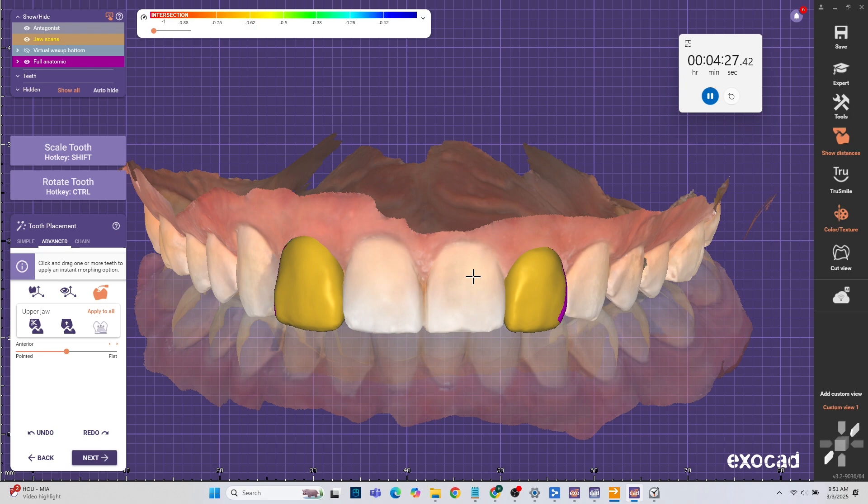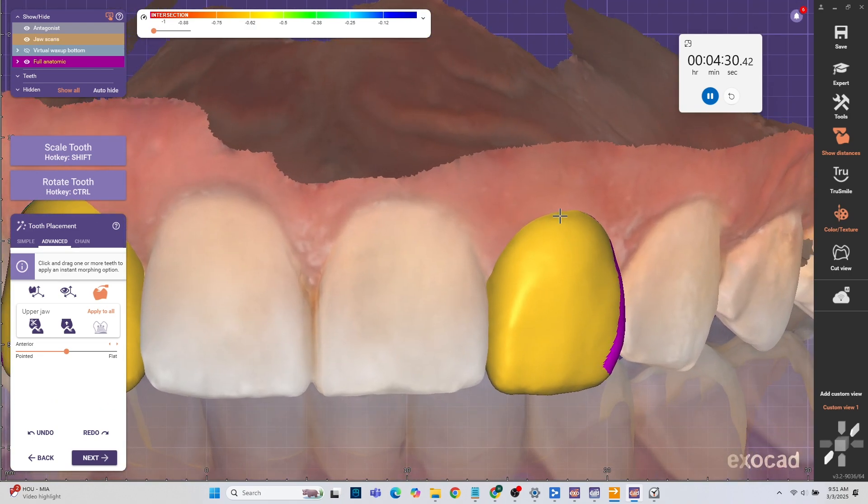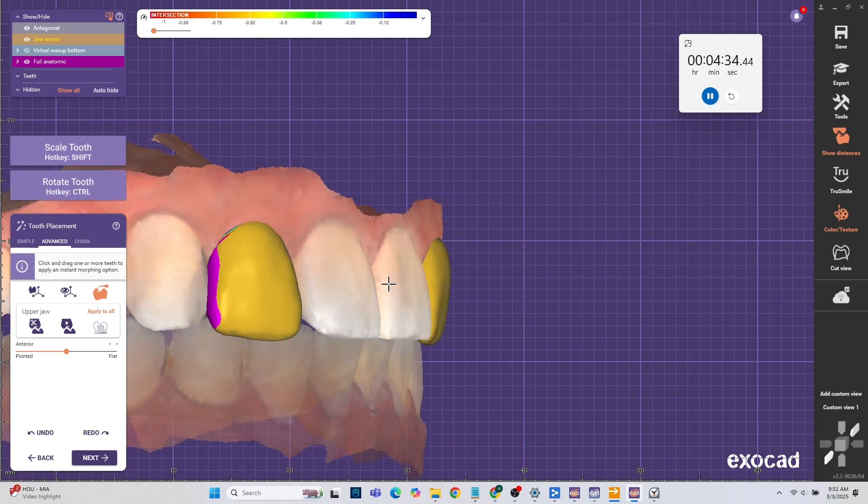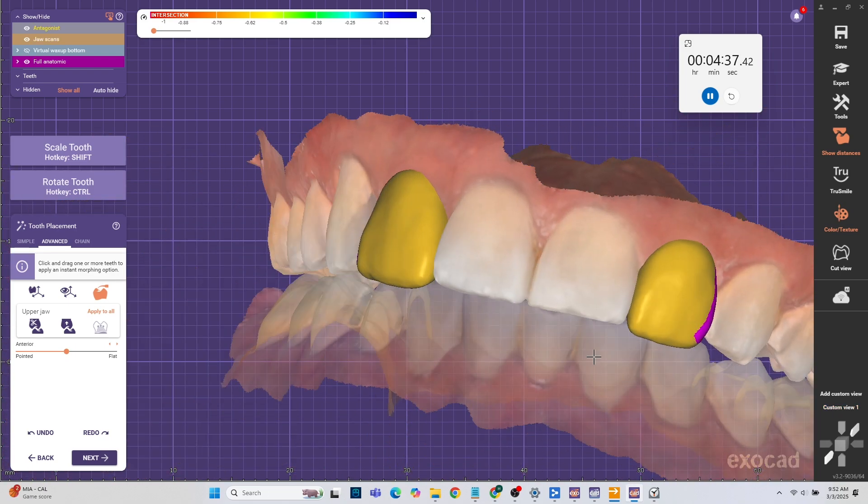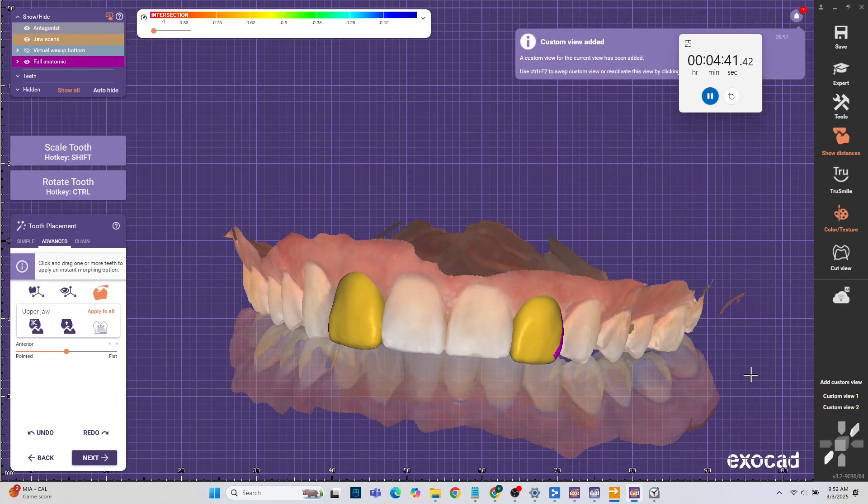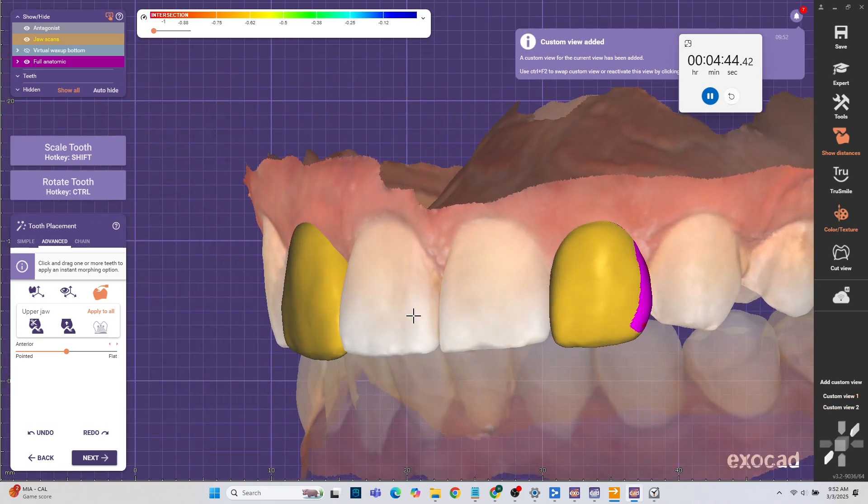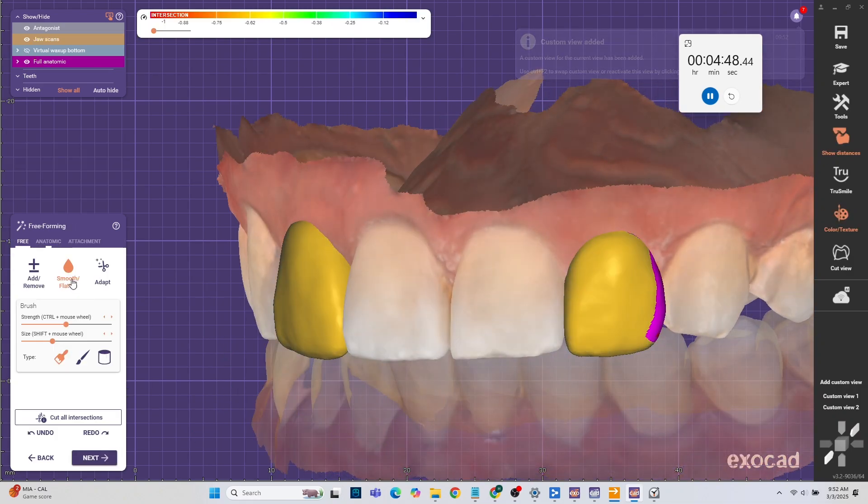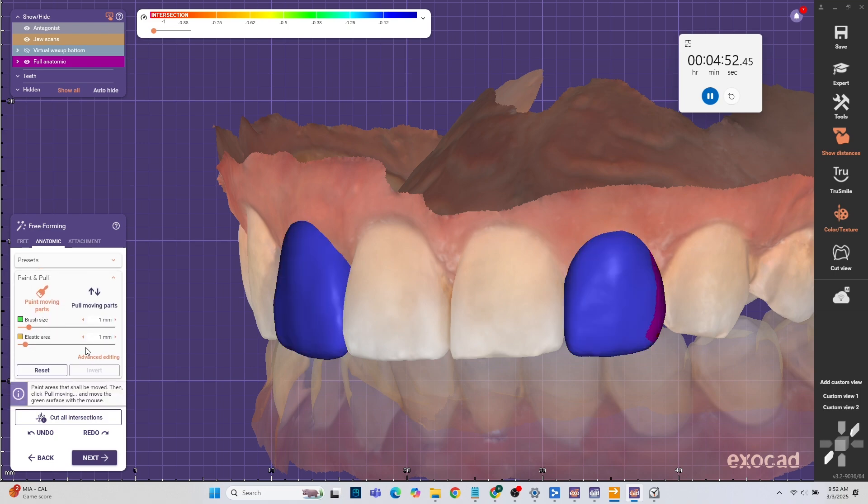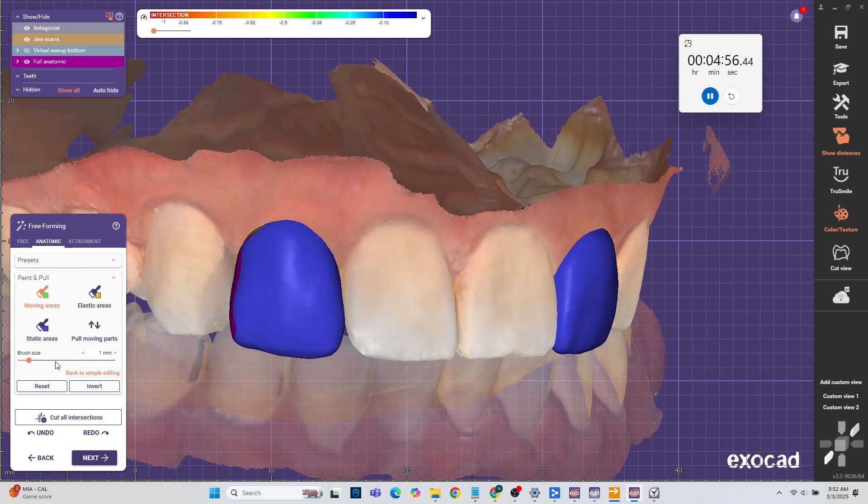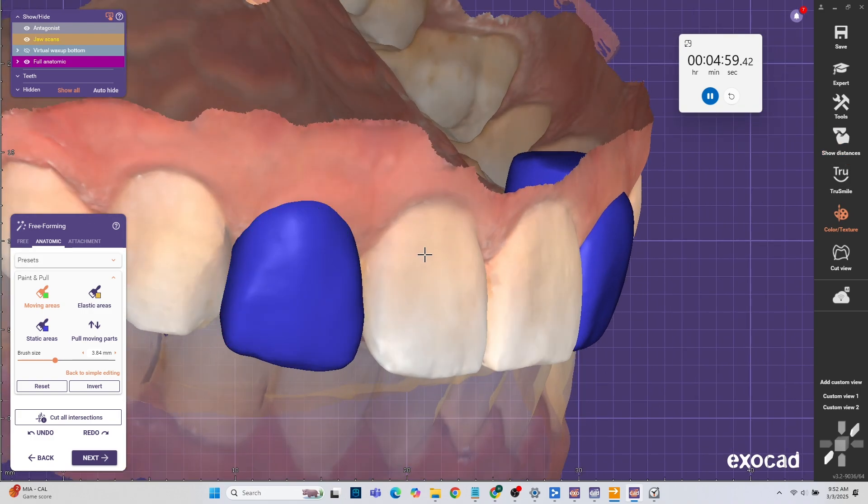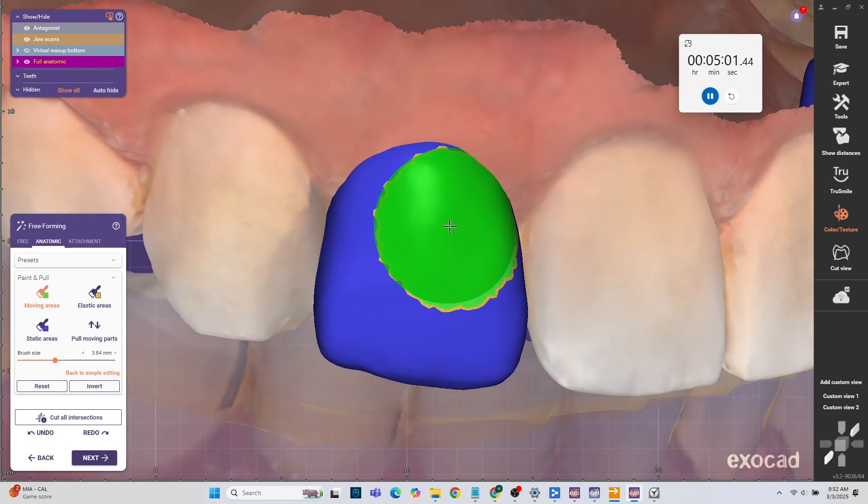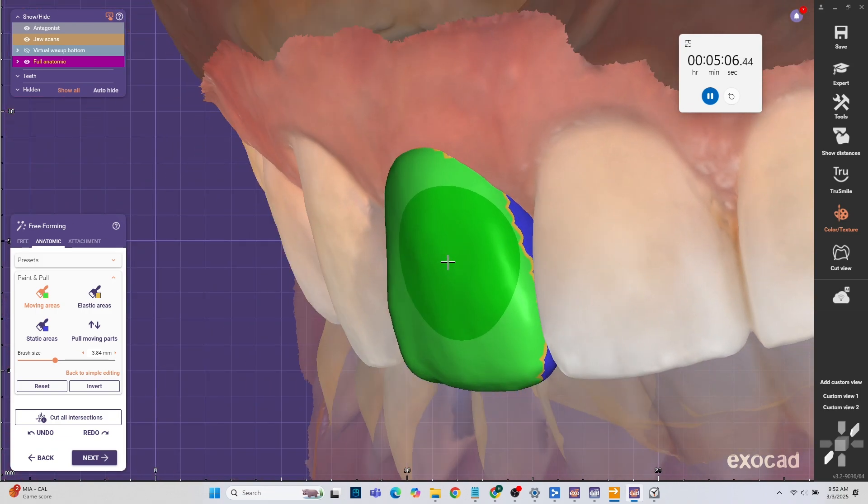Right now I'm just focusing on the gingival heights. Usually you want the gingival height of the laterals a millimeter or a little bit less than the centrals and the canine. You don't want that gingival height to be so much higher than them or too low. So kind of in between. Usually it's a millimeter, a little bit less. It also depends on what the doctor is suggesting. Or if you are doing it, well you can decide how much gingival reduction you want.